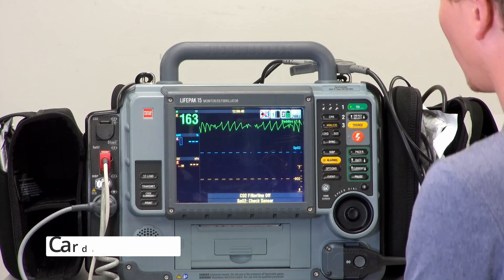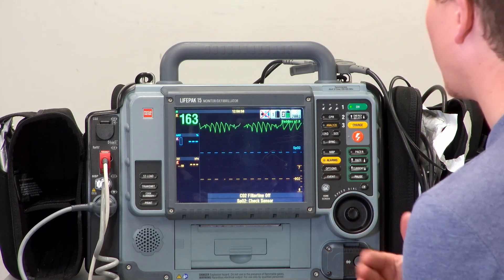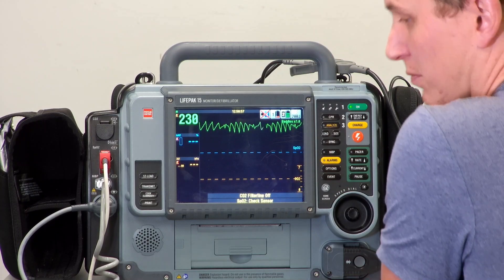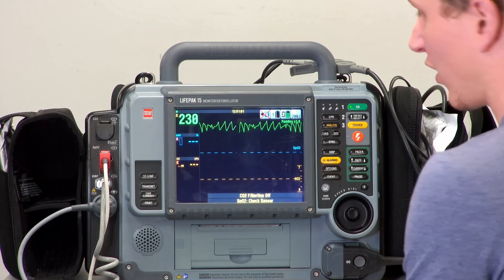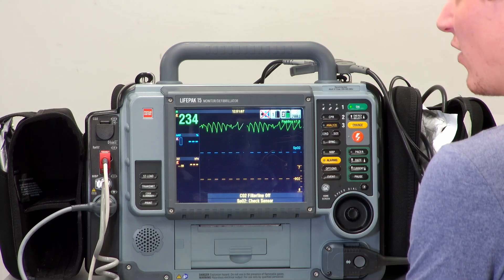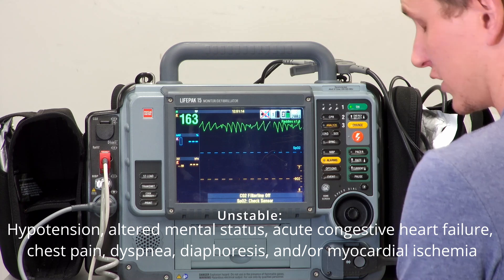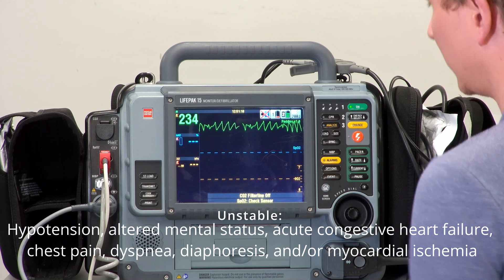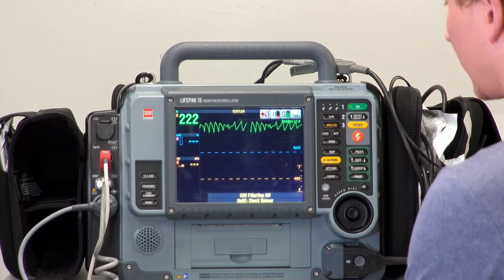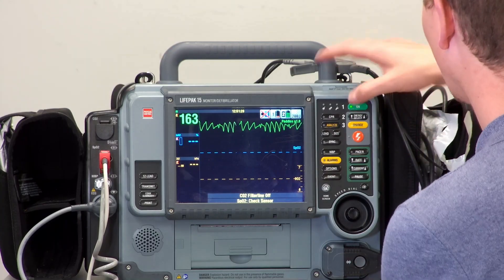Let's move on to how to cardiovert with the LifePak 15 — not necessarily going through what cardioversion is, but clearly how to use the LifePak as your device to cardiovert. We want to shock patients who are in an unstable tachycardia, whether that's SVT, VT, AF, or whatever the rhythm, as long as they are unstable — showing signs of shock such as decreased level of consciousness, chest pain, hypotension, and poor perfusion. Make sure this fast rhythm is causing them to be sick, not that they are sick and that's causing the fast rhythm.